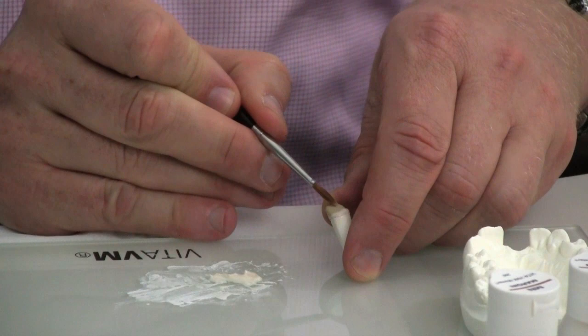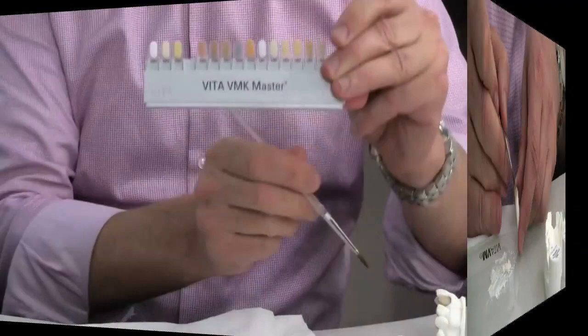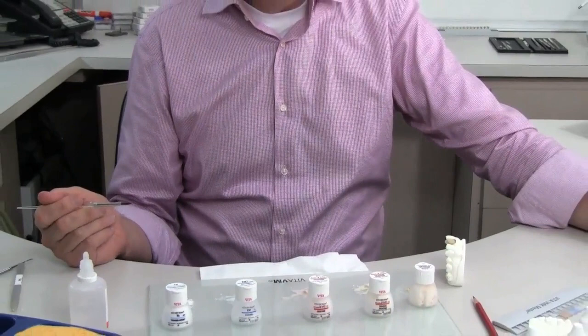The goal here is to give you a fundamental understanding of the material. As most Vita's products are ideally developed with chroma around at the neck, I've laid it in this location over here, and we'll lay a little bit of that on the incisal edge just so you can see what kind of effect the dentin modifiers are.